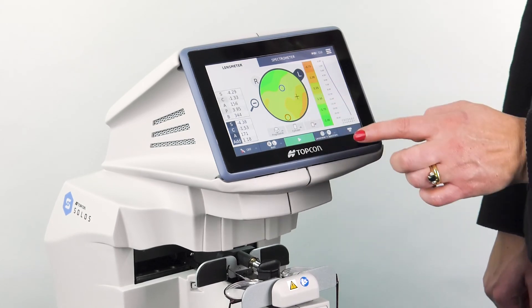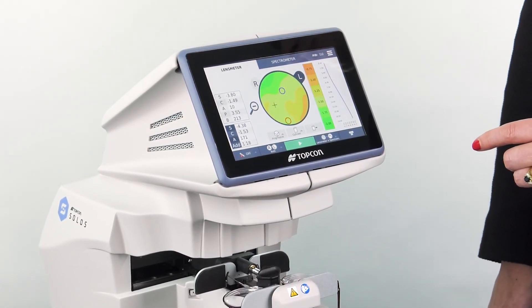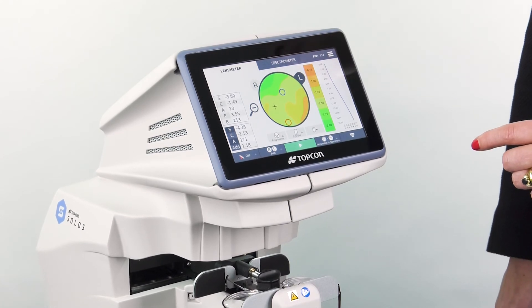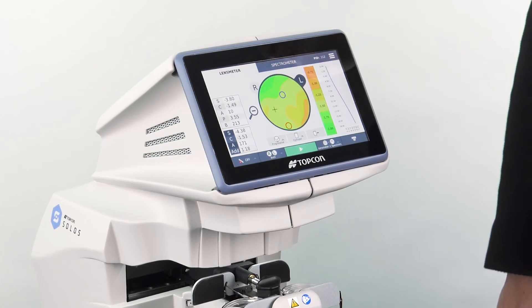Touching on the map at any location gives the lens power indicated by the location of the cross, allowing detailed study of the design of the lens. And that's how you review the lens mapping data provided by the Topcon Solos. For more information, please check out Topcon Healthcare University.